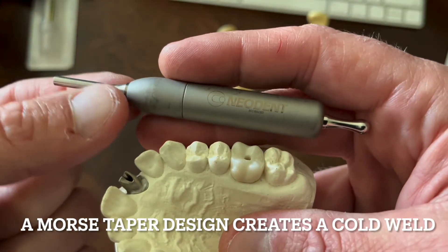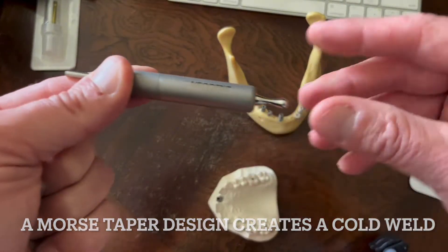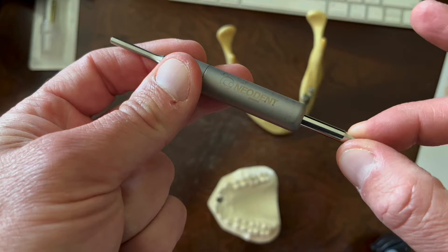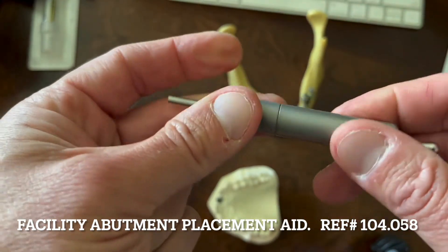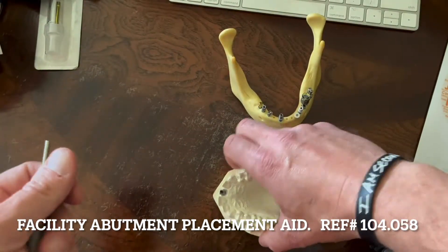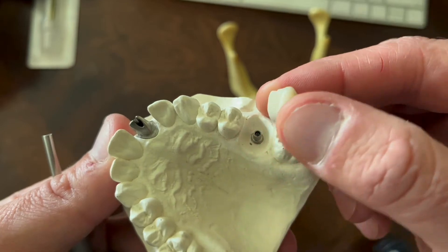This was used with our 2.9 facility implant. This is a spring-loaded strike hammer. So this is spring-loaded, and if I put my finger on the other end, I feel this thump. One way to look at this — this happens to be a CM — but we're looking at a screw-retained restoration in the posterior.